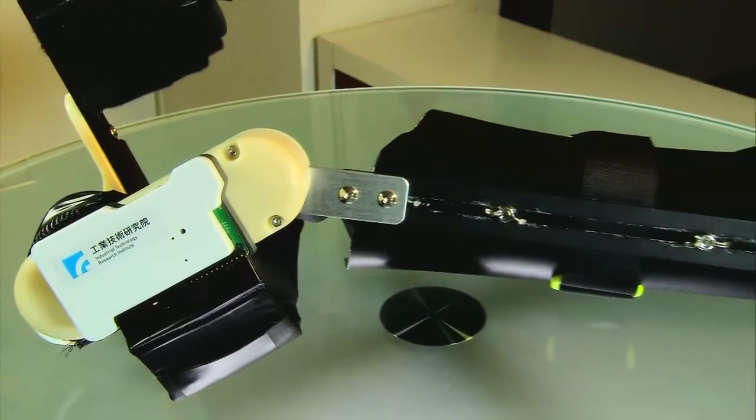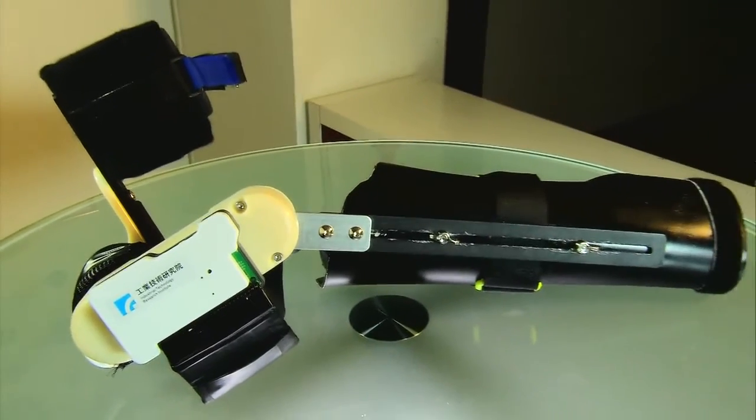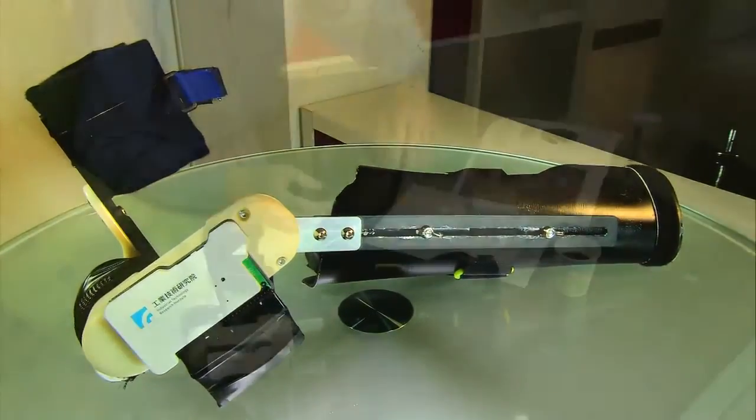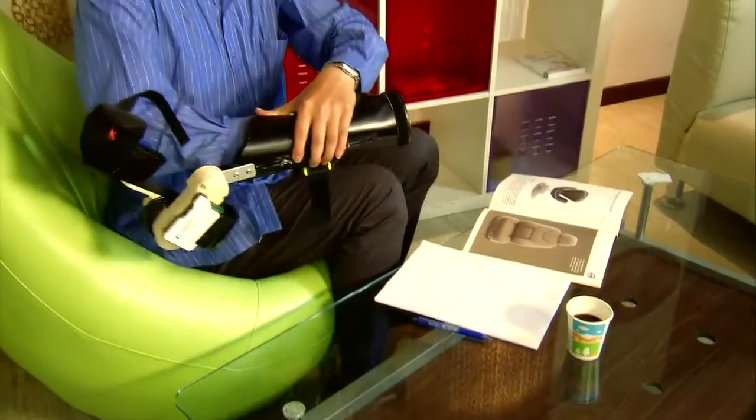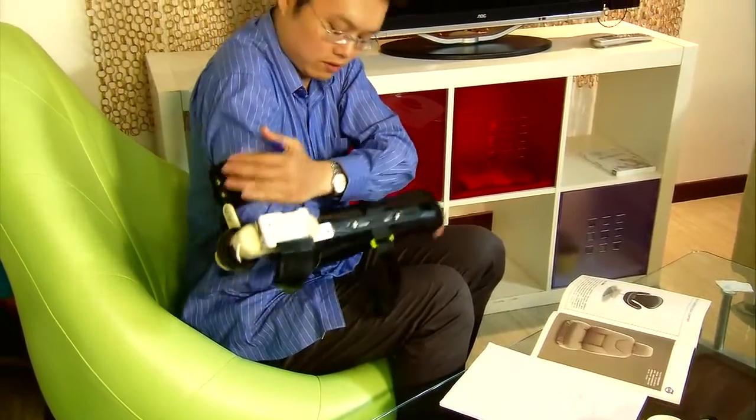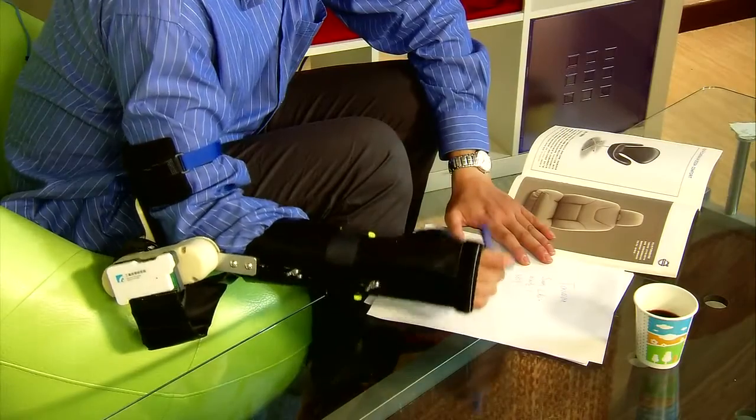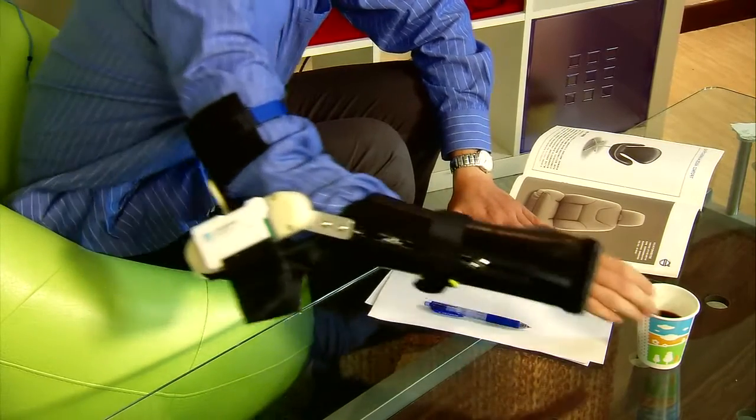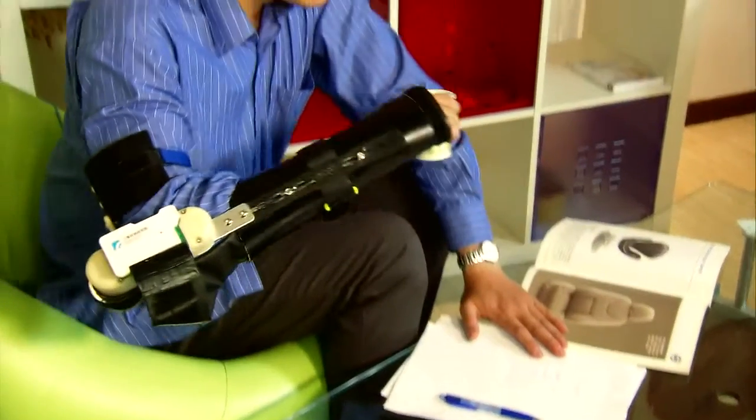The Higher Sensitivity Tactile Film System for Wearable Orthosis, HSTS, is a tactile-controlled upper limb exoskeleton designed to suppress tremors and support voluntary movement when flexing and extending the elbow. This is particularly important during eating and other daily functions.